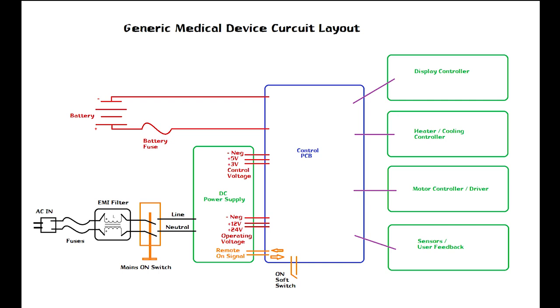But the one thing I want you to know is you notice that both the line and the neutral on my AC switch here are going to be switched, because in medical equipment they usually kill both the line and the neutral when you disconnect the power switch.